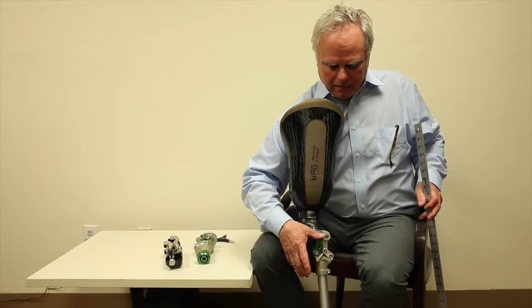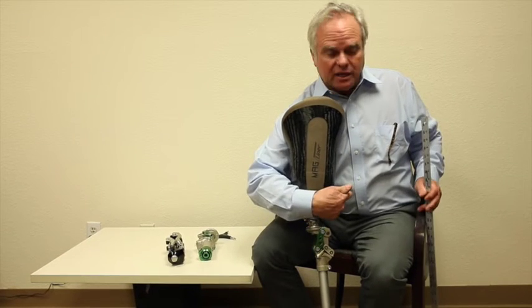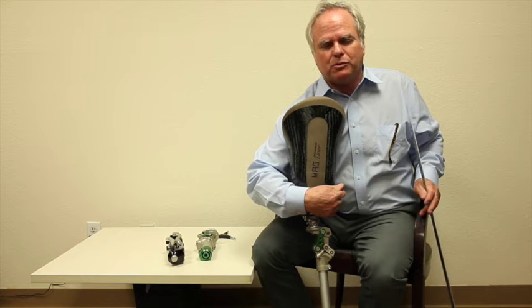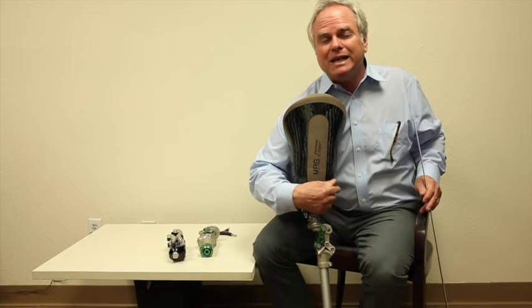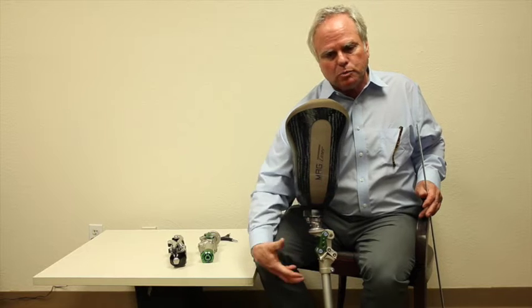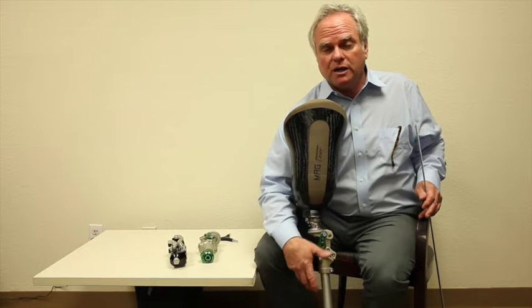So if I can tilt this knee backwards, I'm putting the knee center even more stable. It's about stability. How do I align it? If I want it super stable for a patient, you align the knee accordingly to what you're trying to achieve.